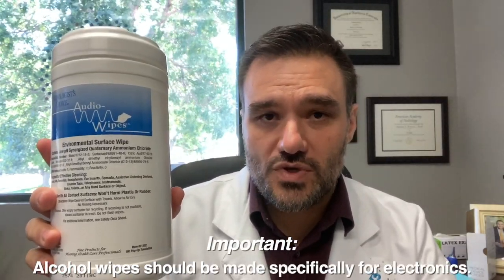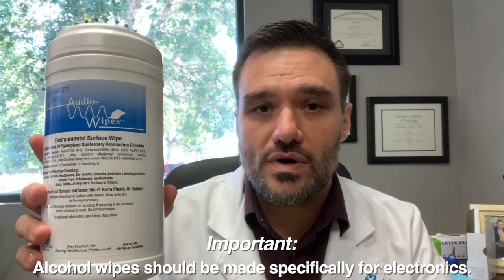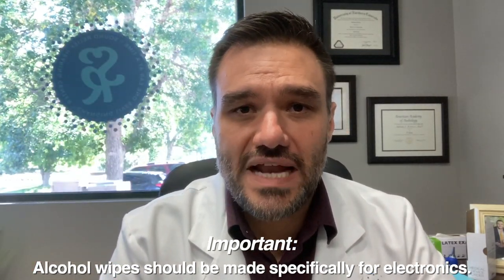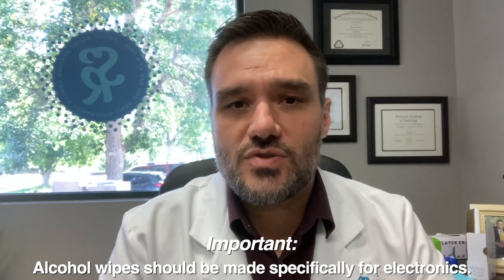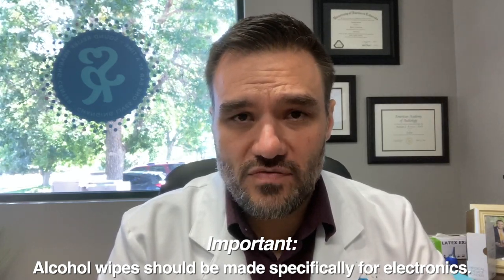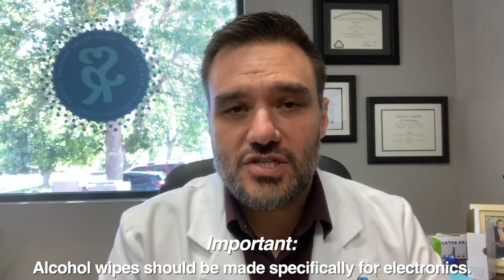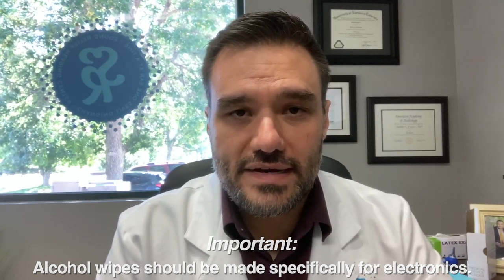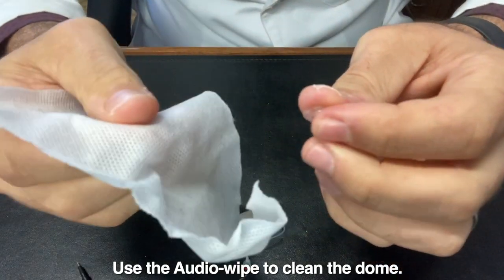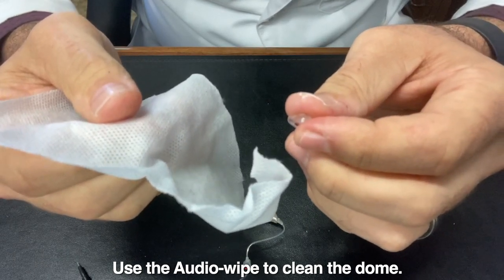So here at Sound Relief, we use audio wipes, which are specifically designed for devices. If you're in a pinch, you can use an alcohol prep wipe, but it is recommended that you use audio wipes if possible. They're designed specifically for electronics. So here's the audio wipe.